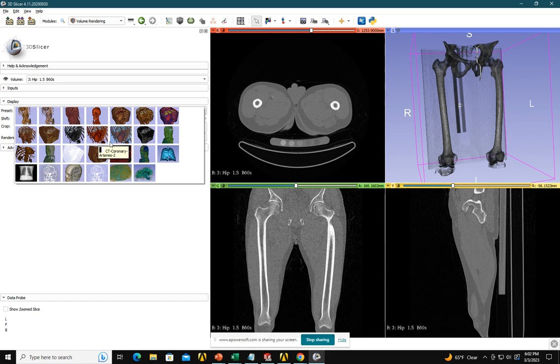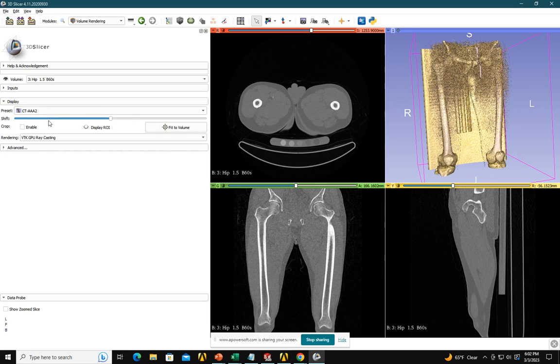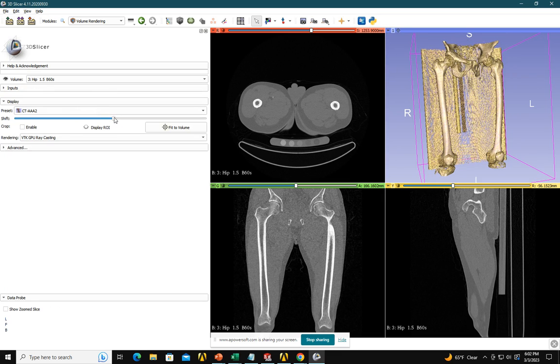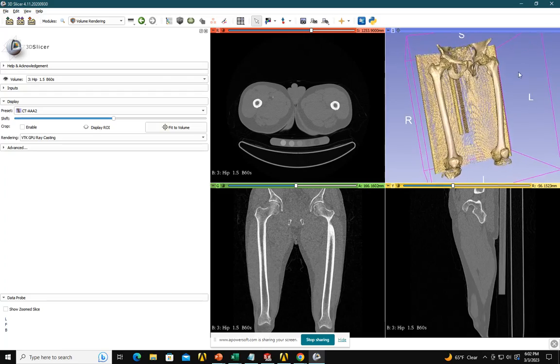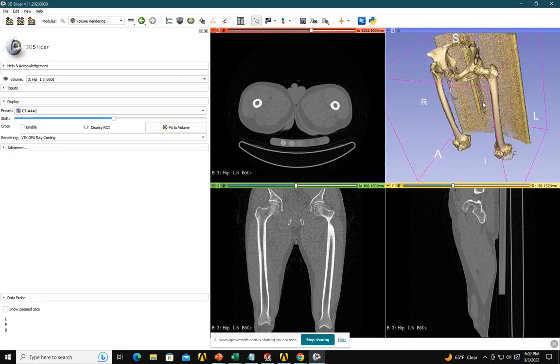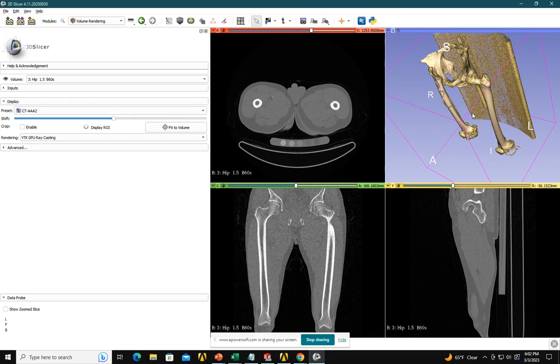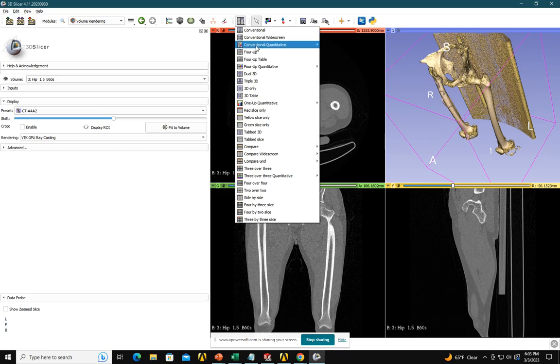If you want to go for the hard tissue images, it will look like this. If you want the bone, it will look like this — just changing how you want to see it. And if you want to rotate, you hold Control and you can start rotating. Let's say you want to see only the 3D view. You can click here on the layout, and you can see.